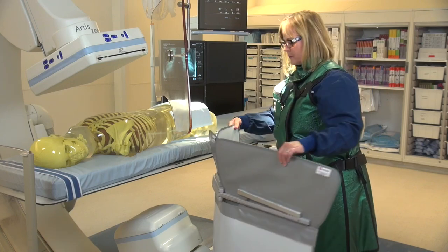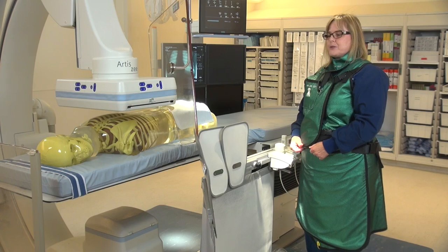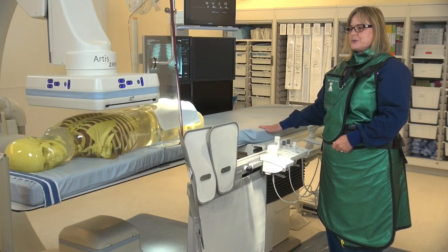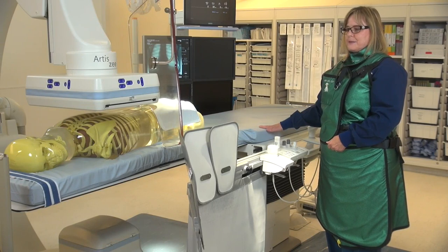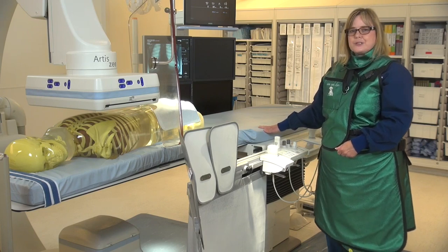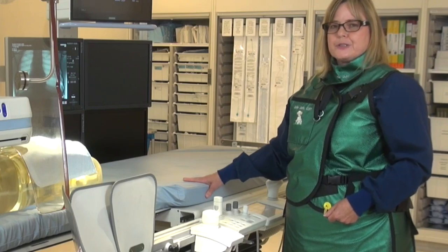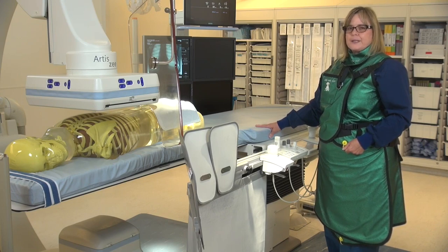We want to make sure when we're using collimation that we do collimate so that we're just looking at the heart under imaging. We use fluoroscopy modes of imaging and we also use acquisition, which would be like recording the x-ray. What we can do to cut down on exposure is that when we want to record an image, instead of recording it in acquisition, we can actually record that image under a mode called store fluoro.